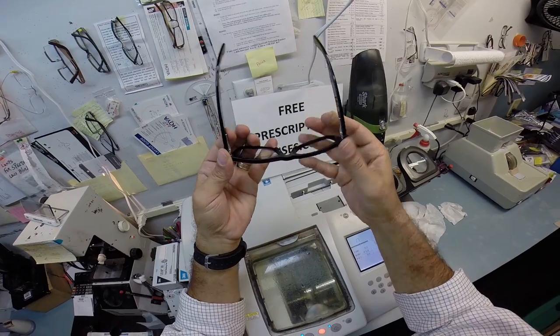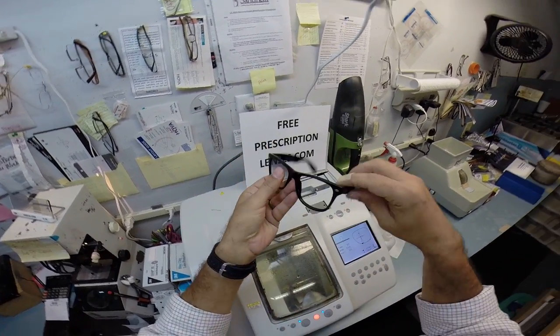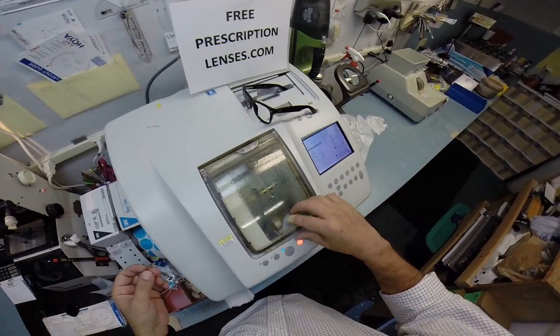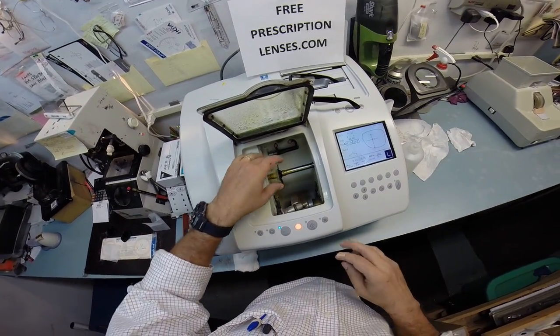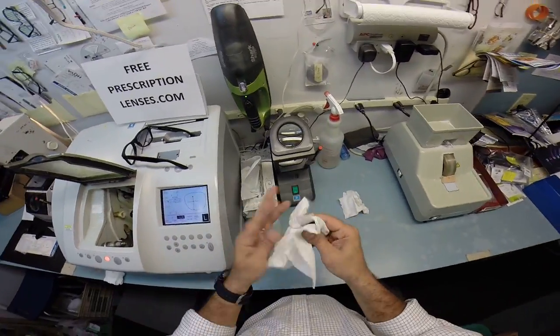So that's why they quit putting the spring hinges. The fact that yours is still relatively straight means there's very little wear and tear on this frame. I don't know if you've had these for 20 years, but it looks like it. And you never wore them.